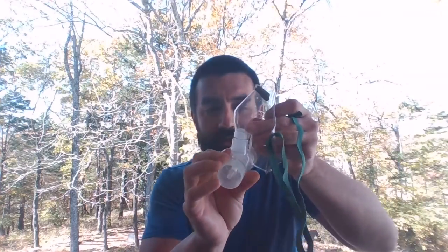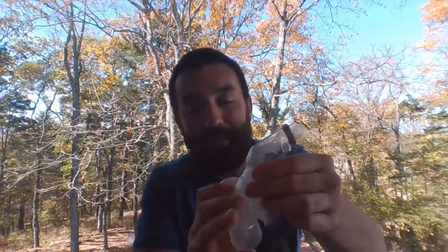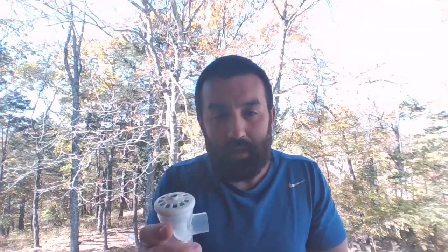Not tricky, but it's a little bit weird at first because this does hook up, but once again, you're not going to go, all right, sir, take your medication like this here, position them. So it hooks up, but it's less than ideal. Okay, so if we had to run this with a mask, first off, as I put my medicine in, it has to be selected to the continuous aerosol output.